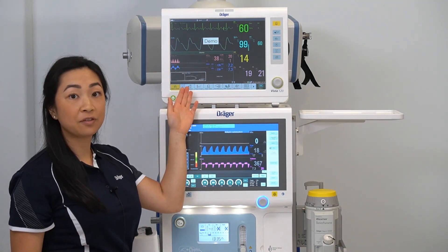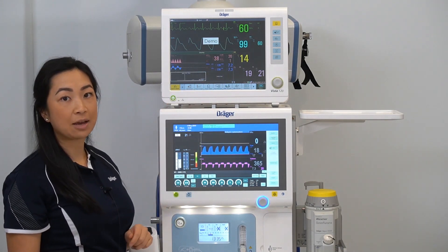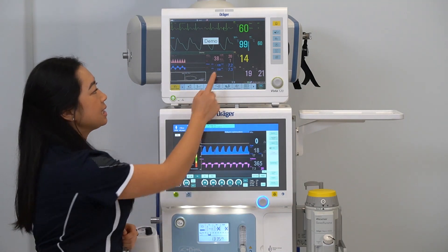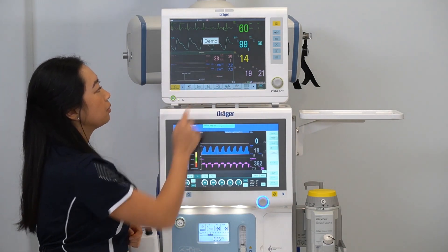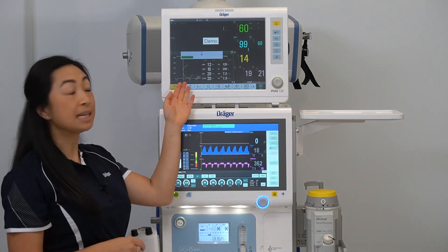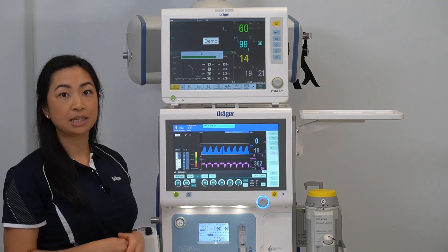Here, loop information is now being displayed. By selecting on large loop you can view additional information.